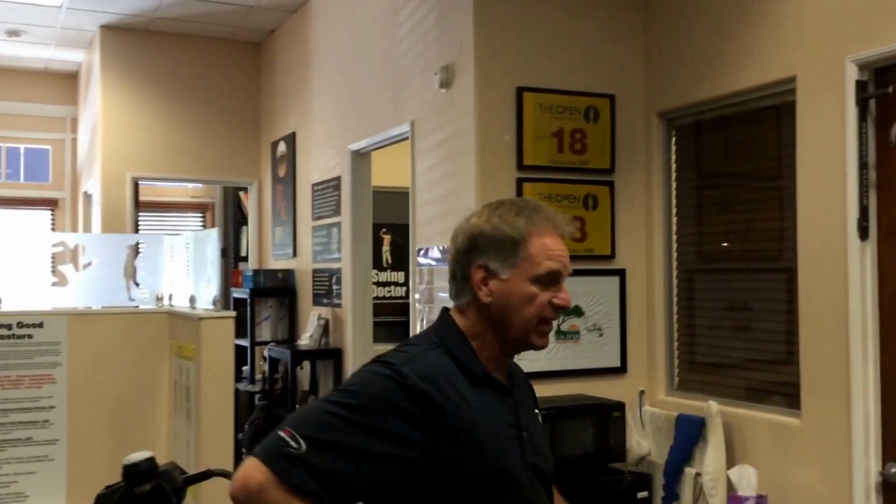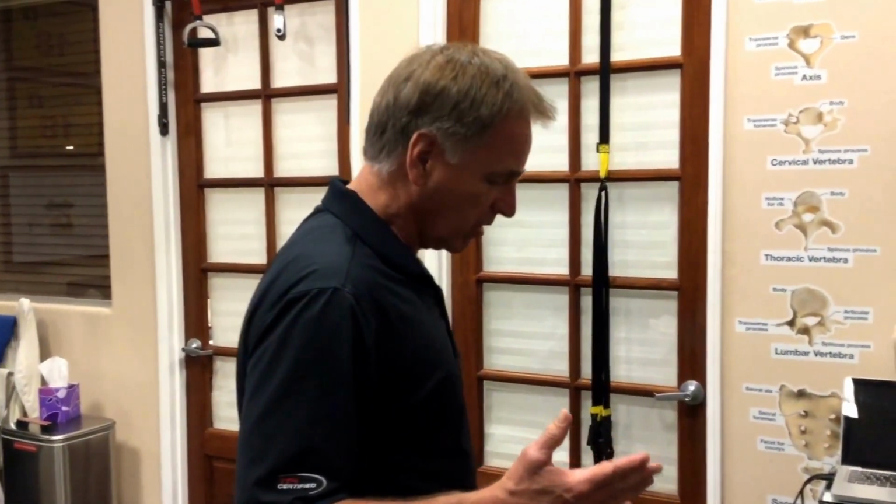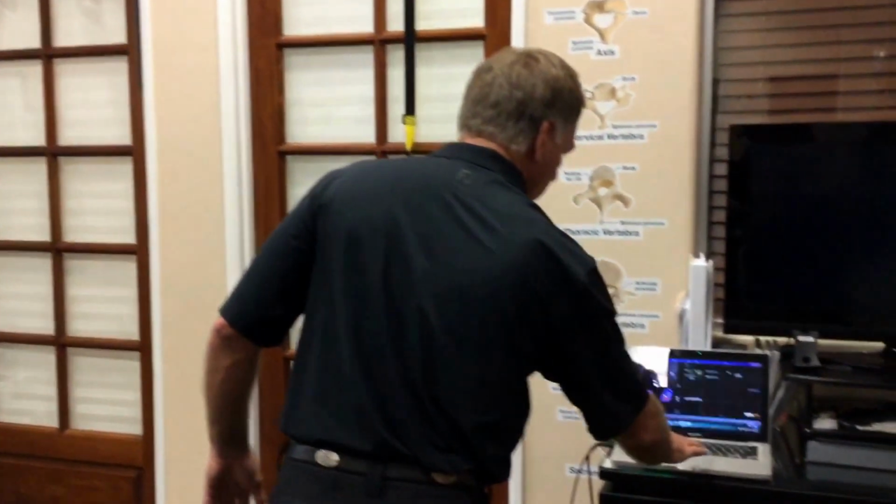Okay, Christina, what we're looking at here is my office setup, and we're going to talk today about utilizing the Boditrak within our medical clinical world. We all have a lot of fun with it on the driving range and with our lessons, but let's look at some medical application here.